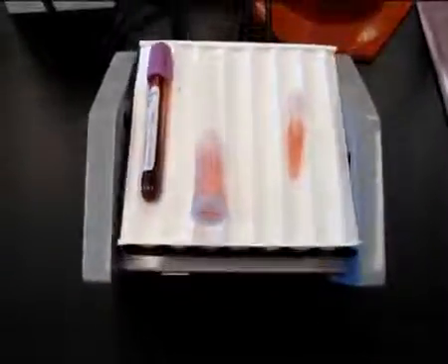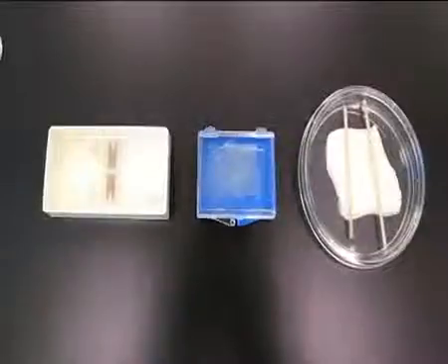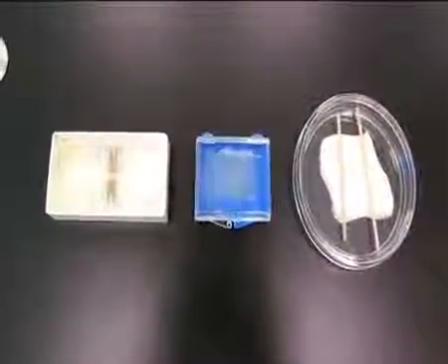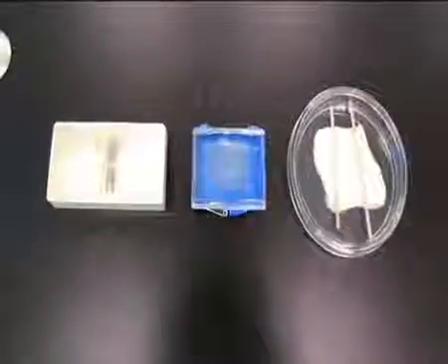Let stand 10 minutes to allow red blood cells to completely hemolyze. While waiting for the solution to mix, obtain the following materials: a hemocytometer, a cover glass, and a humidity chamber.